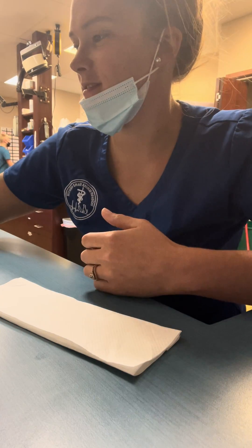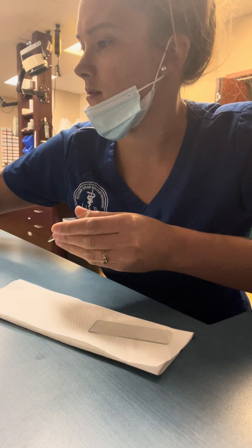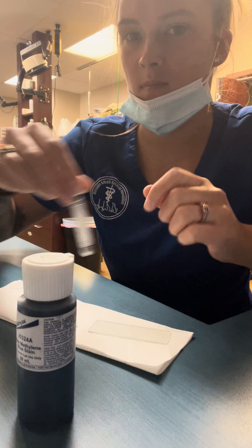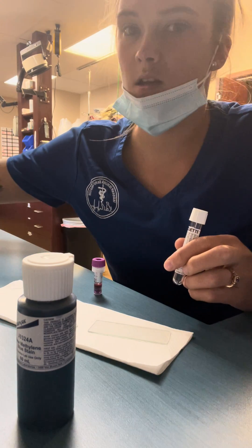I'm going to show you how to make a blood smear for a reticulocyte count. So I have my two slides, my new methylene blue, plain top tube, my blood, and two pipettes.